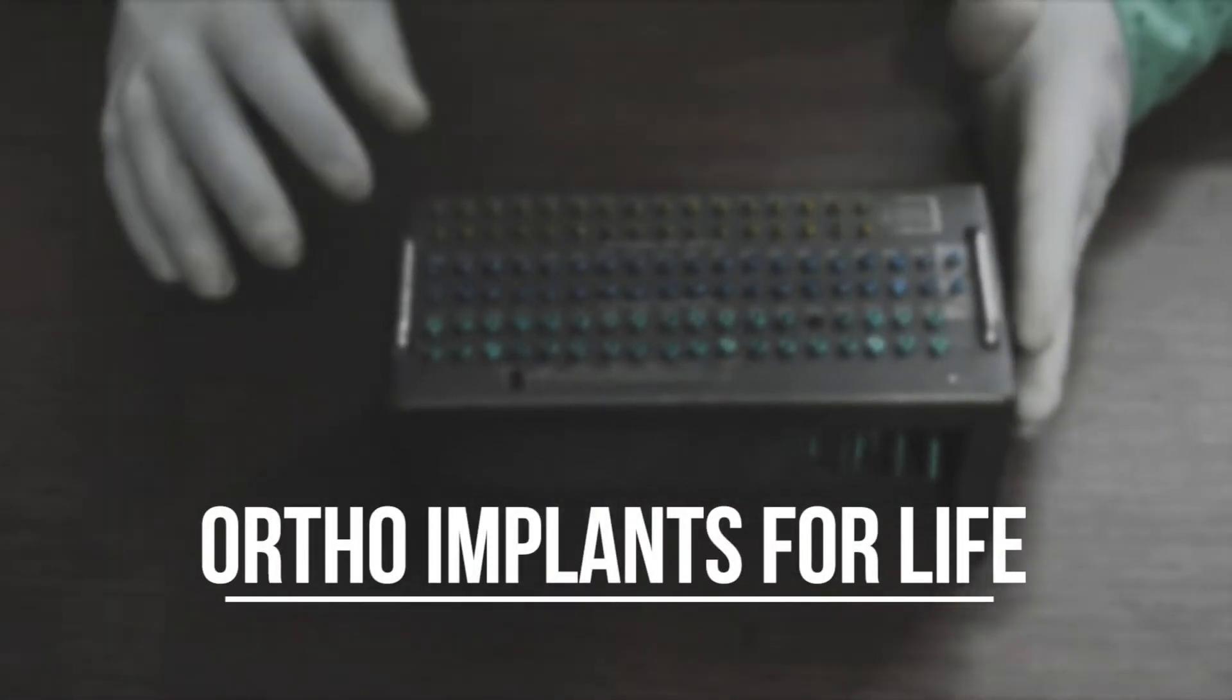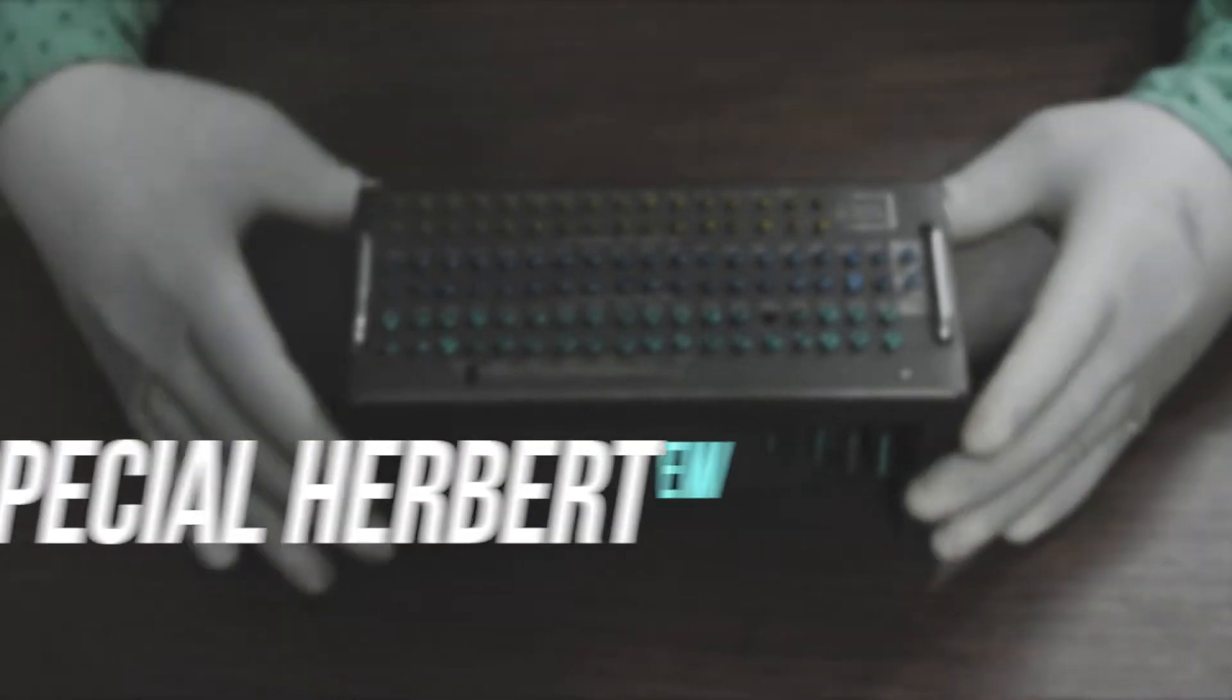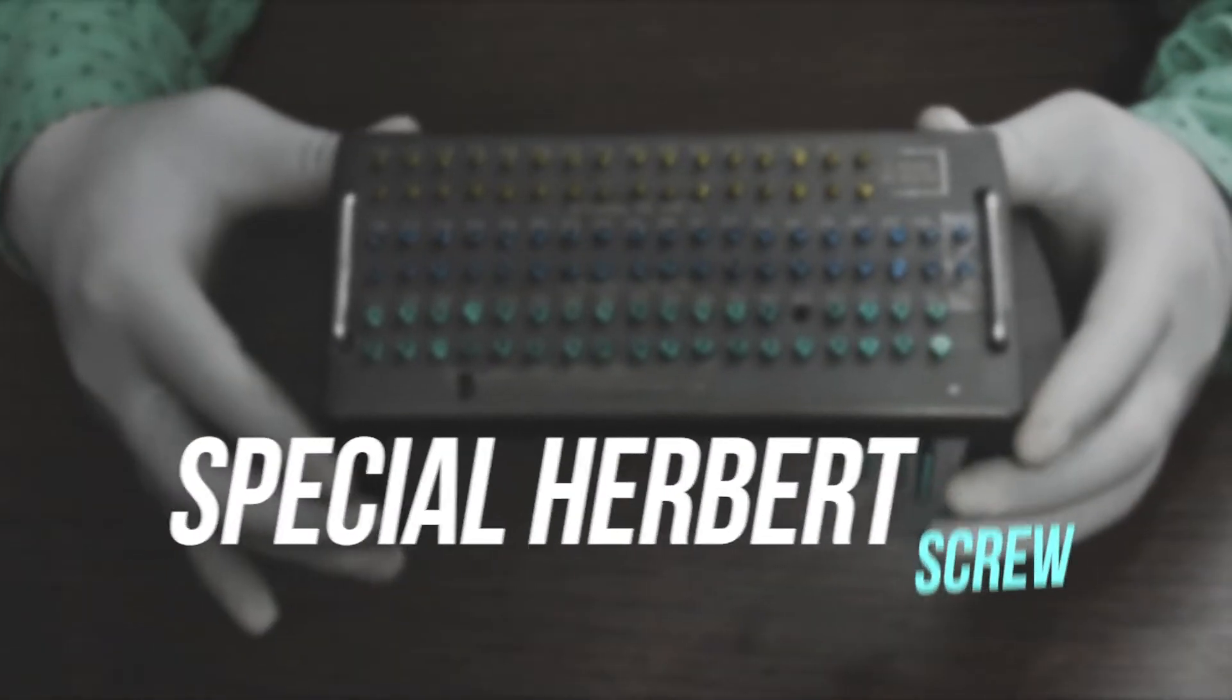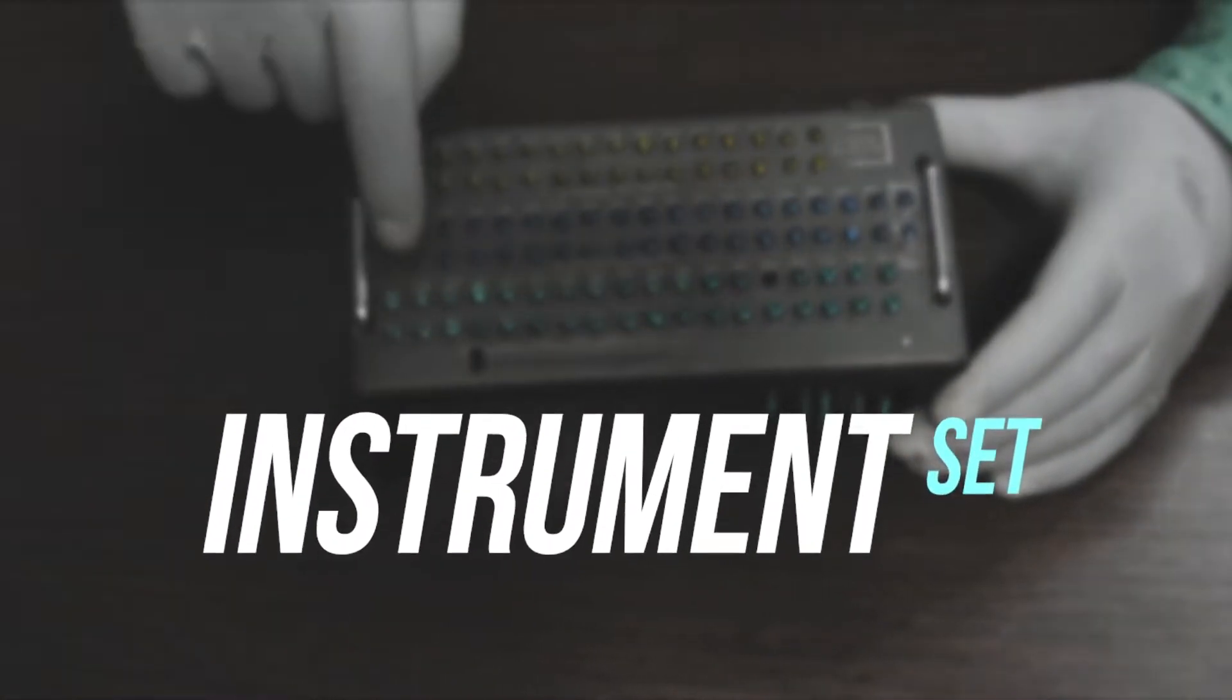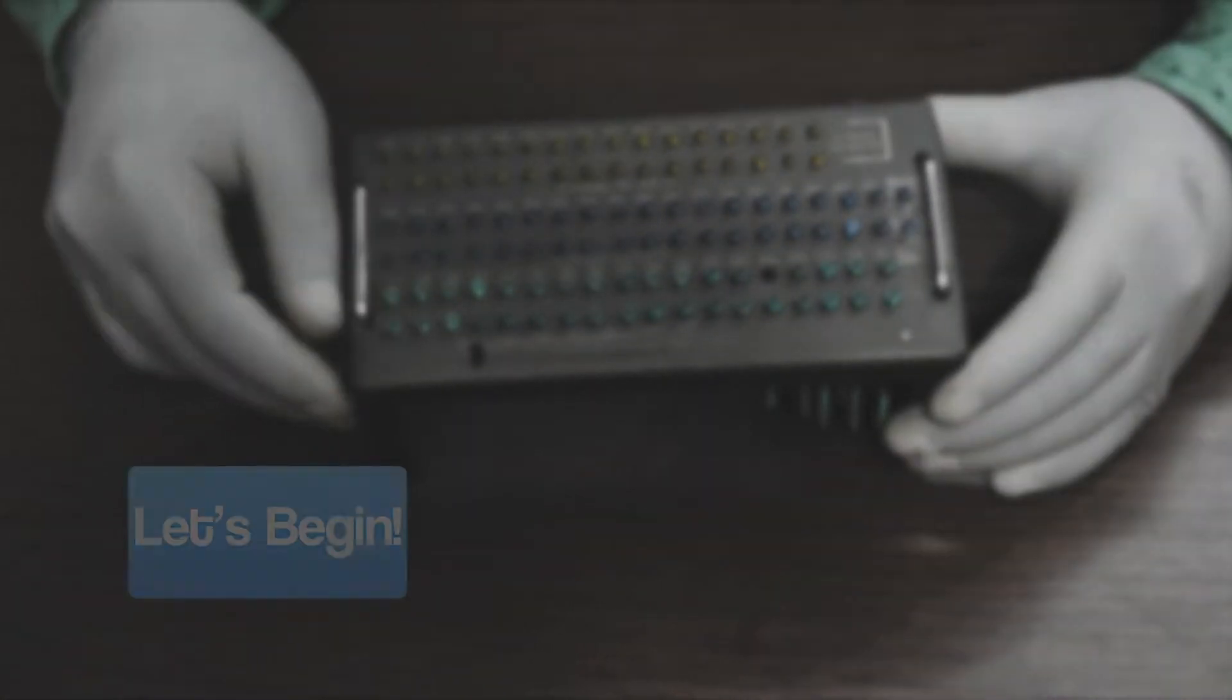Hello everyone, welcome to Ortho Implants for Life. Today we will discuss the Special Herbert Screw Instrument Set, so let's begin.